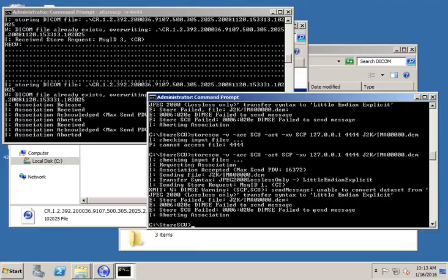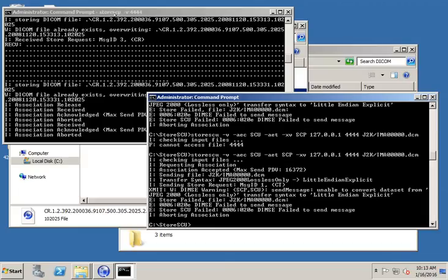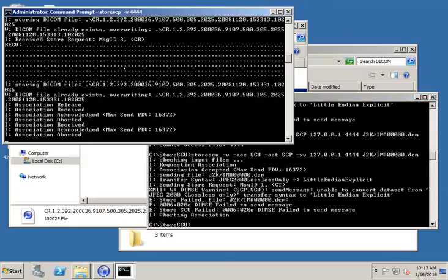Let's try that again. And it fails again. This time, if you notice, once again, it tried to send little endian, which we don't want it to do. We want it to just pick up this J2K file and try to send it J2K as is, because maybe we're trying to test sending J2K.